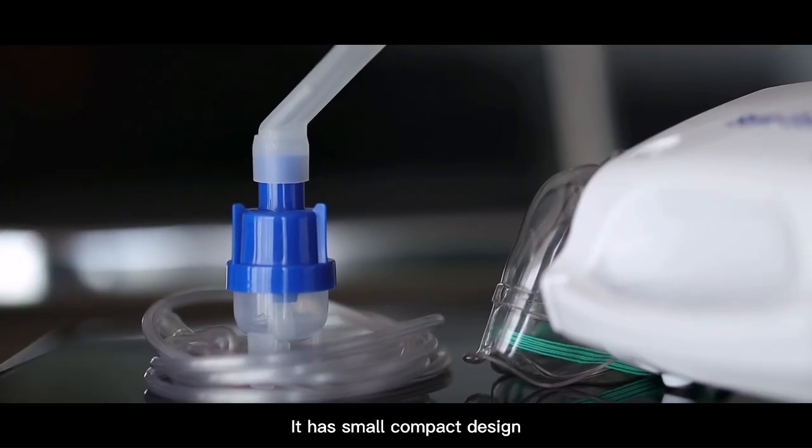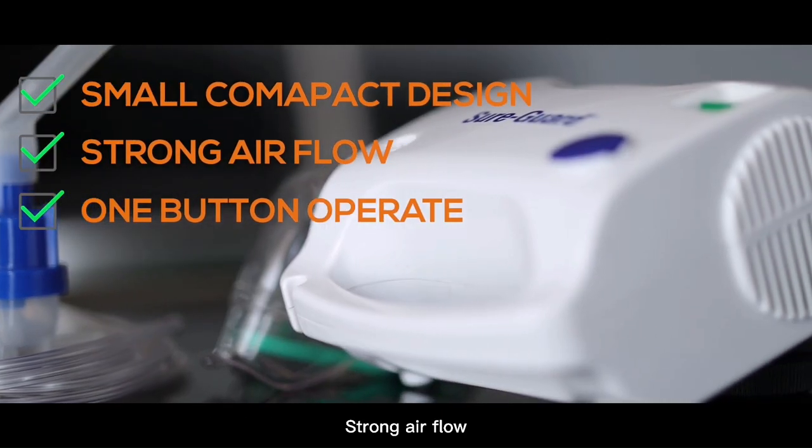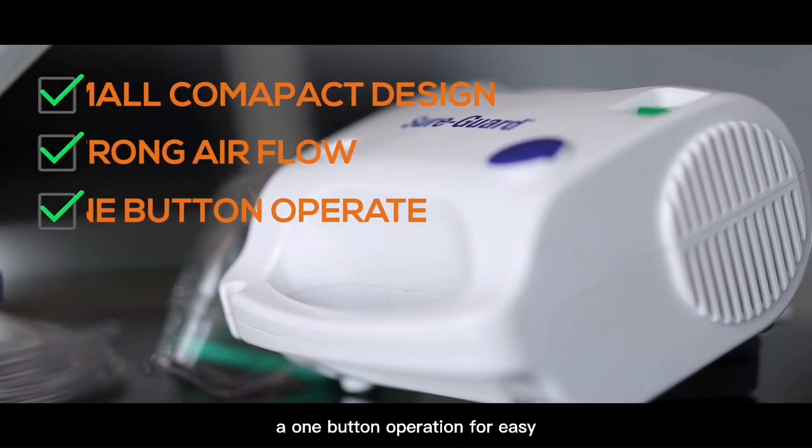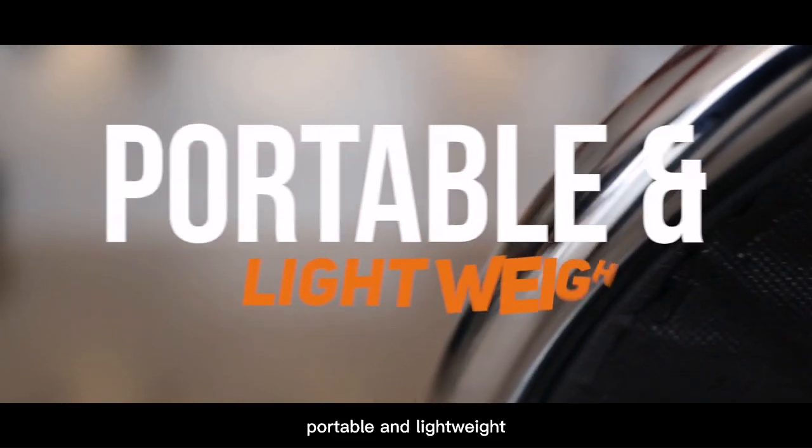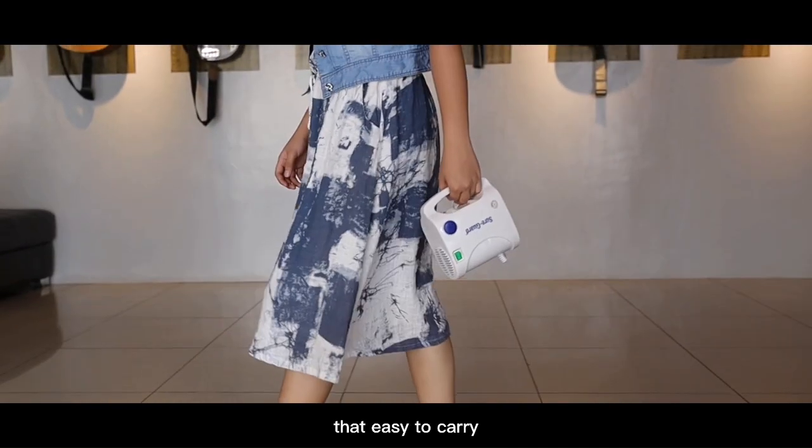It has a small compact design, strong airflow, a one-button operation for easy use, and is portable and lightweight, making it easy to carry.